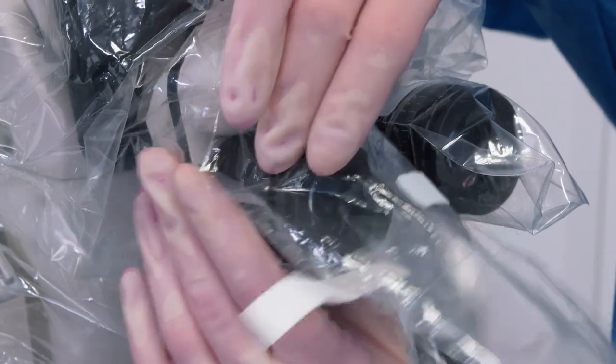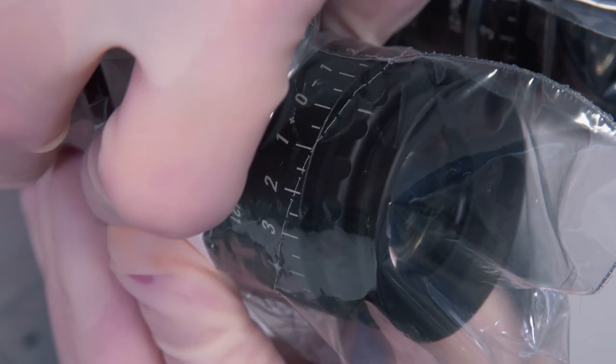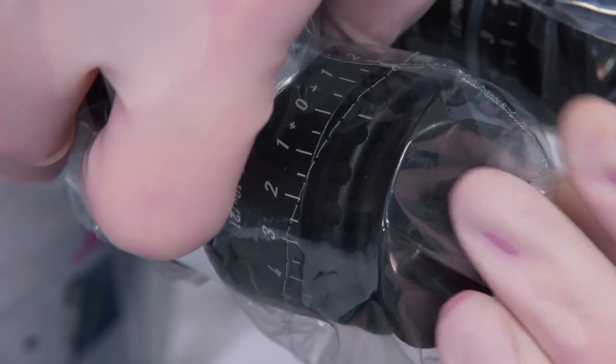Be careful, the eyepiece drapes are perforated at their end. It is important to be gentle in order to avoid any detachment.